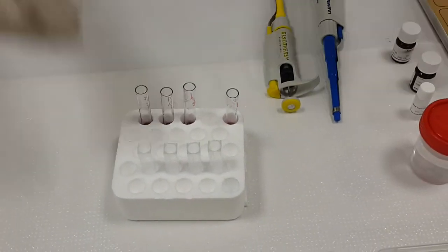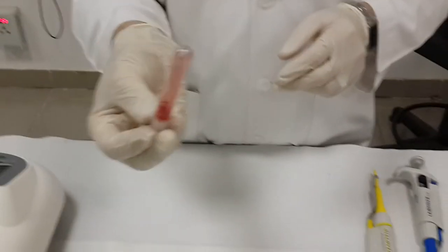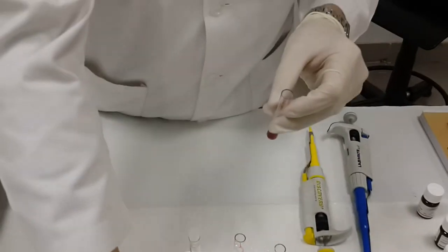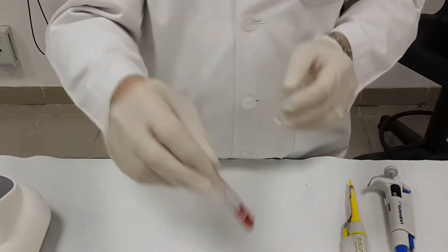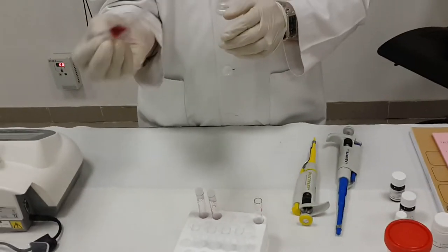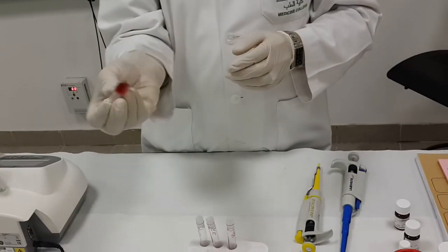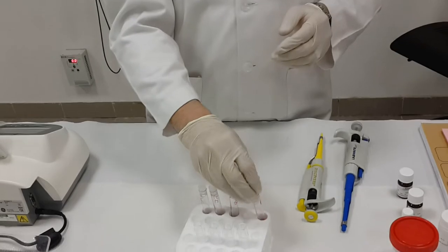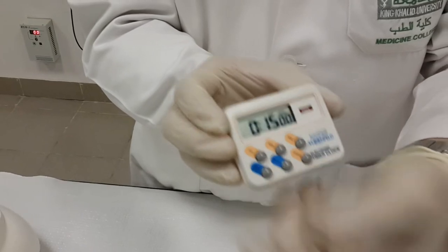Discard the tips, close the reagent. Then I have to mix, it's very important to mix in this case by inversion several times, 1, 2, 3. As we said, we can use this cover plastic or can use the parafilm in this case, whatever is available we will use it. After that, I have to incubate for 15 minutes in this case. I will start the timer.